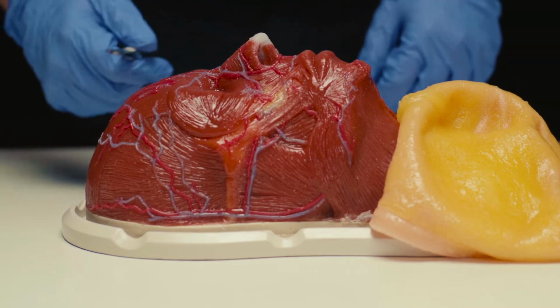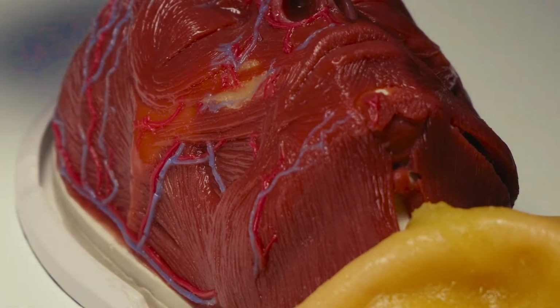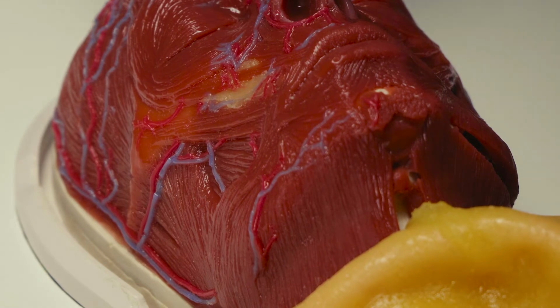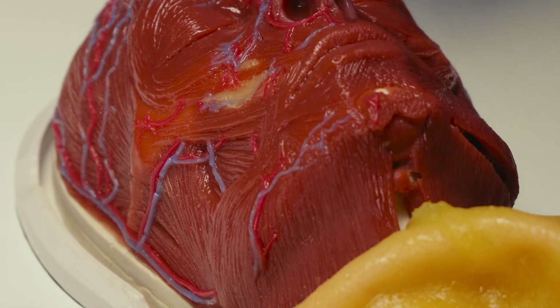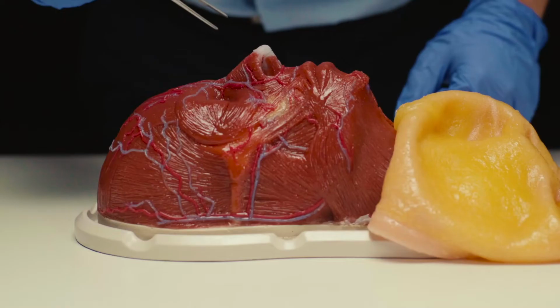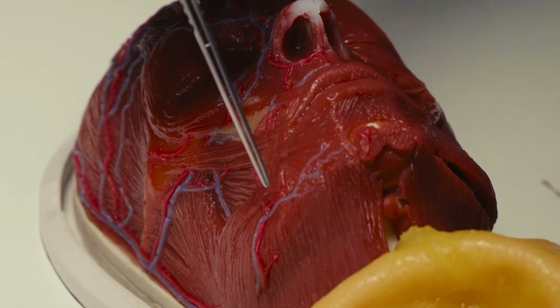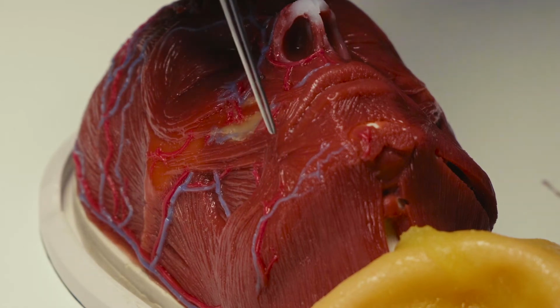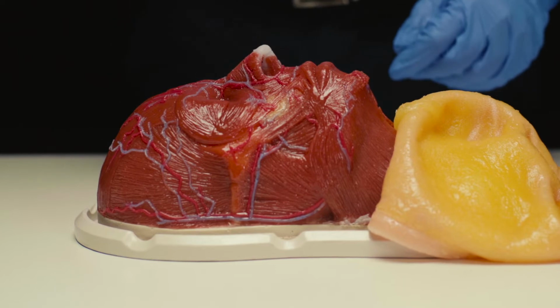On this layer, you can see the main vessels on the right side of the iFace. These will be used when teaching how to use injectables on the face. There you will see the facial artery, which goes down and up the muscular layers and appears here as the angular artery.